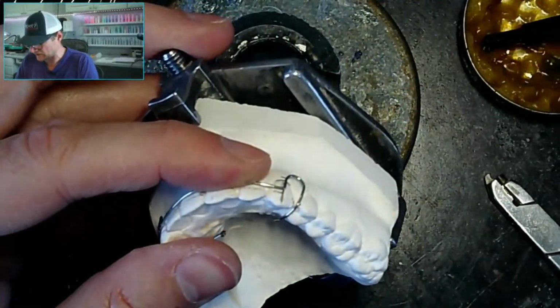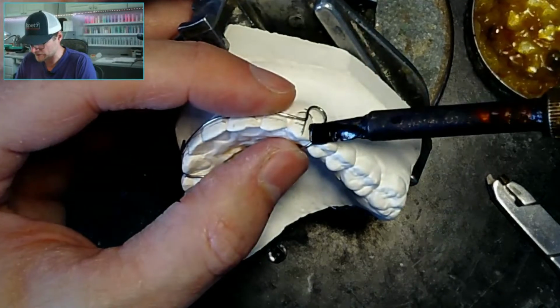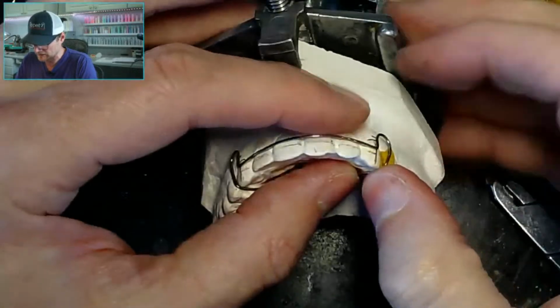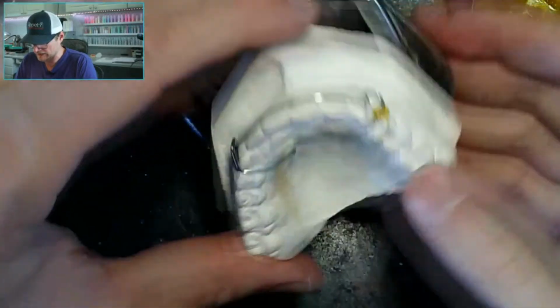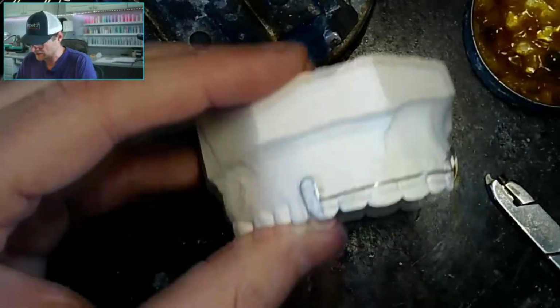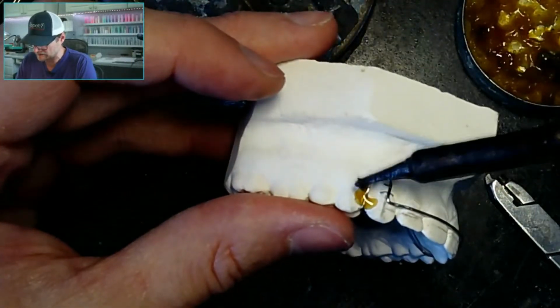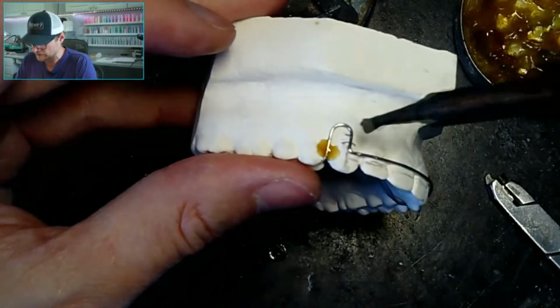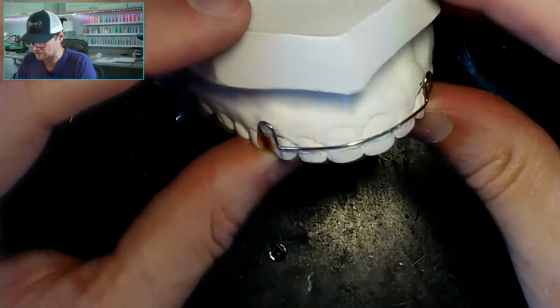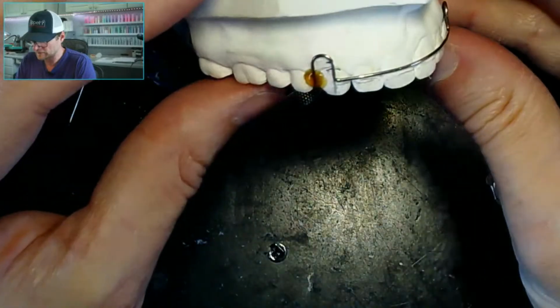And this is something you gotta think about taking with you to those exams. So those that want to take it now are really lucky. If you have an ortho lab that you can take the exam in, you can take the exam. You don't have to go to a strange lab and deal with their strange equipment. And it's like, do they have a steamer there that we get access to? You just don't know what they have on hand, so you got to just take everything with you. All right, I'm going to leave that there.